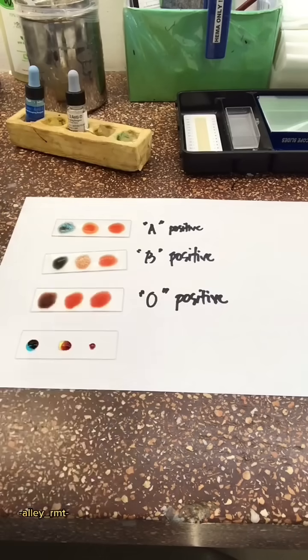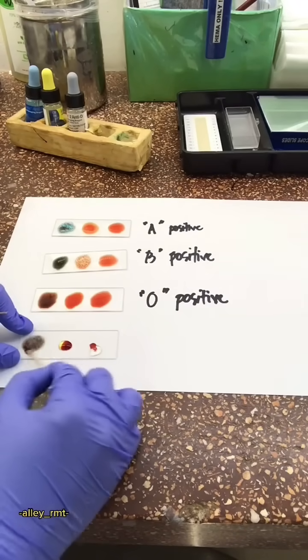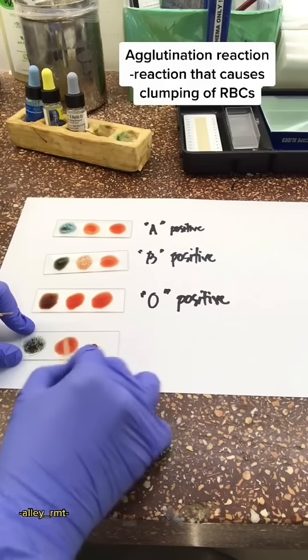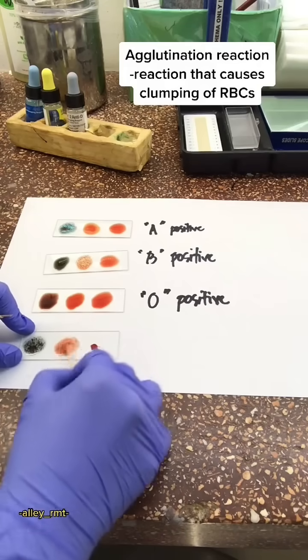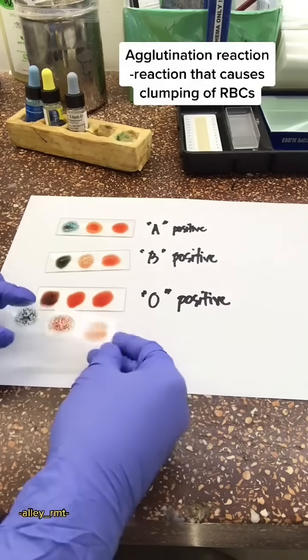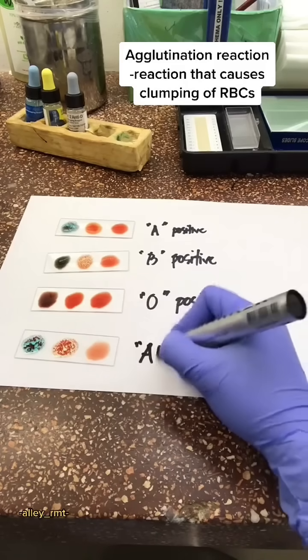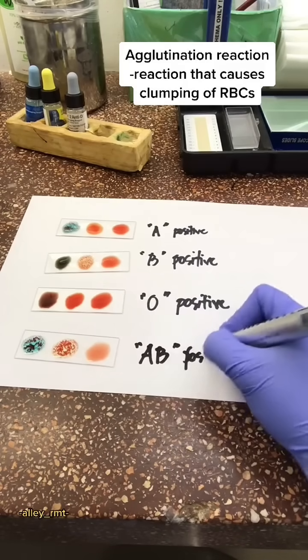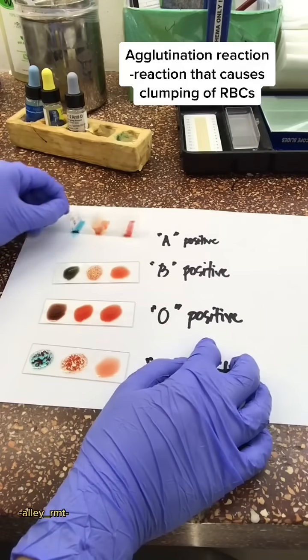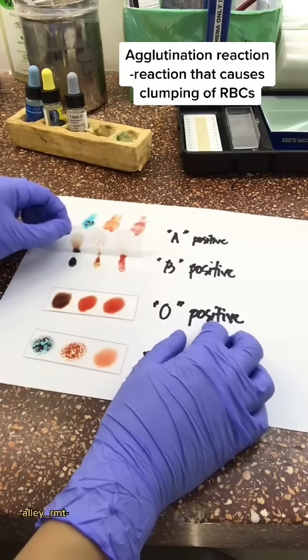The ABO and RH blood grouping system is based on agglutination reaction. When the red blood cells carrying one or both of the antigens are exposed to the corresponding antibodies, they interact with each other to form visible agglutination, or clumping.